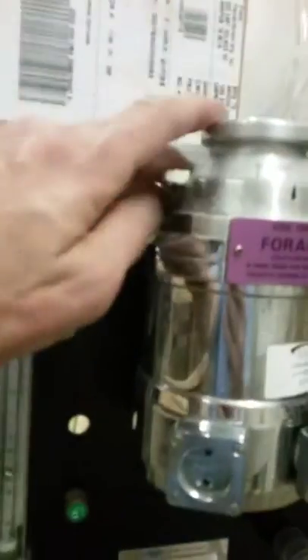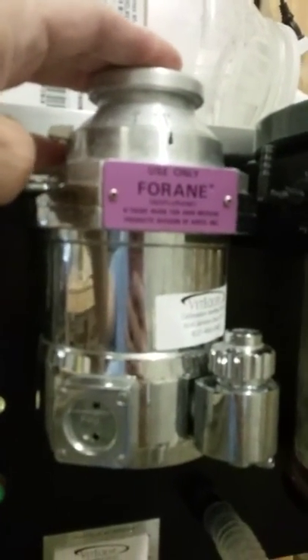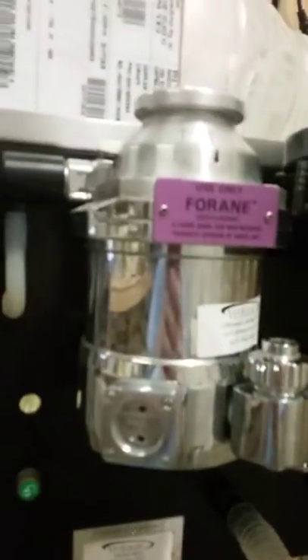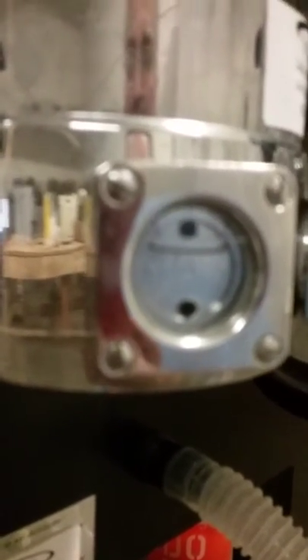Set it at about half a liter per minute. That allows oxygen to flow into the isoflurane vaporizer, which essentially percolates the oxygen through liquid isoflurane. You can see the fluid level in this little window, which represents the level of isoflurane. You never want to fill it over that white line — keep it somewhere at the level of the 'full' word.